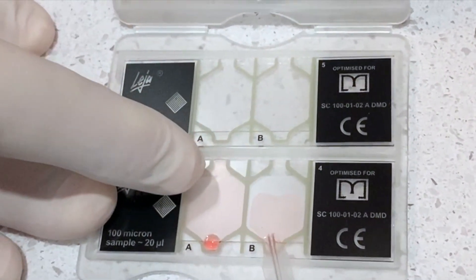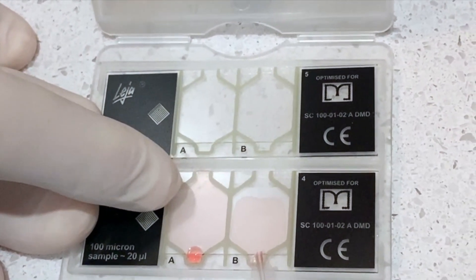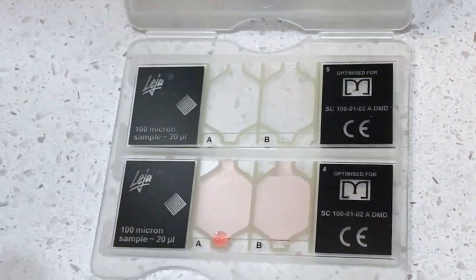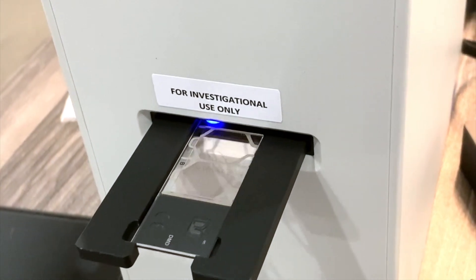Right here we are putting it into the cassette which will later be placed into a computer to measure the platelet counts.